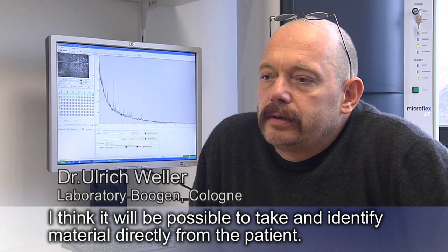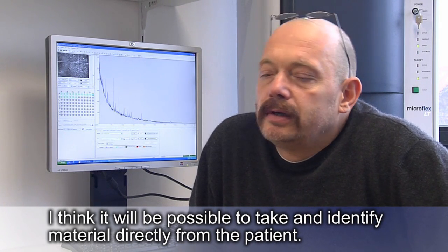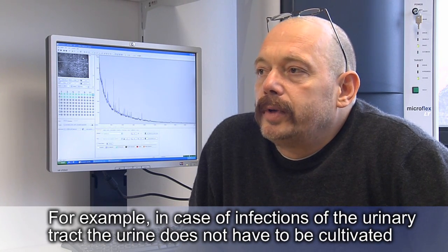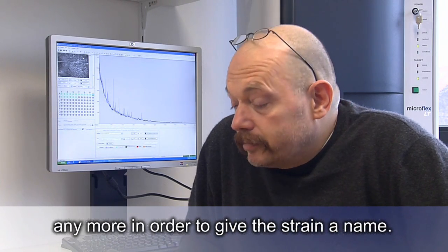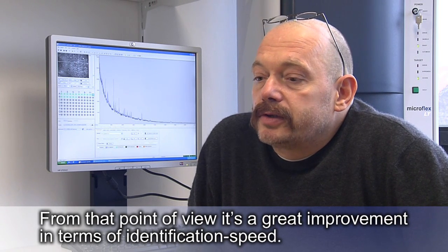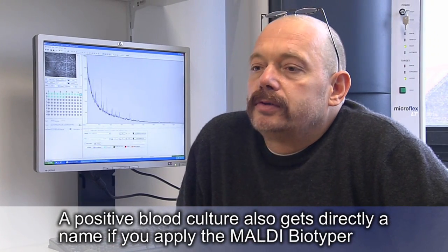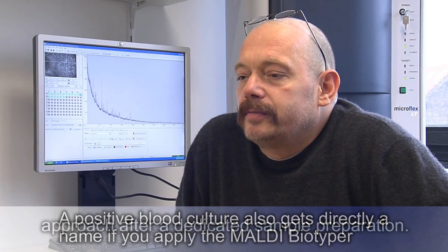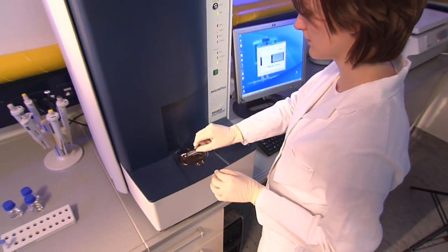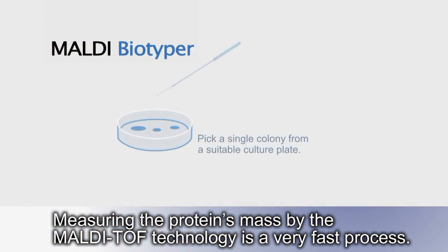I think it will be possible to take and identify material directly from the patient. For example, in case of infections of the urinary tract, the urine does not have to be cultivated anymore in order to give the strain a name. From that point of view, it's a great improvement in terms of identification speed. A positive blood culture also gets directly a name if you apply the Maldi Biotyper approach after a dedicated sample preparation.